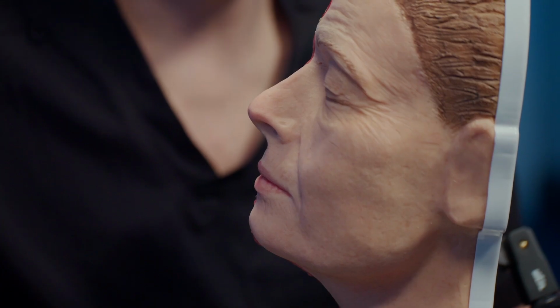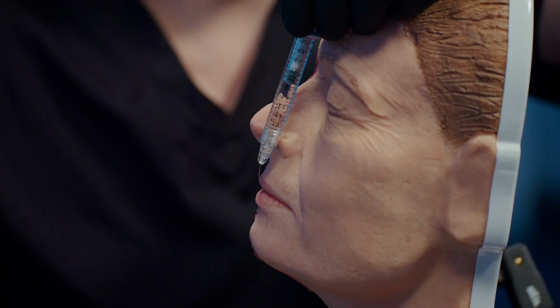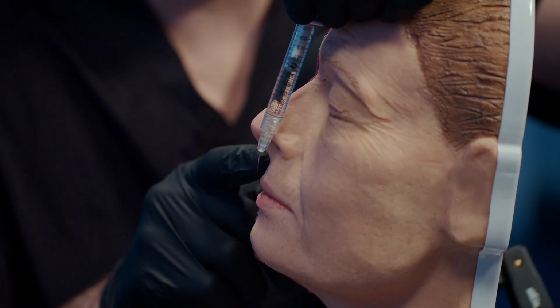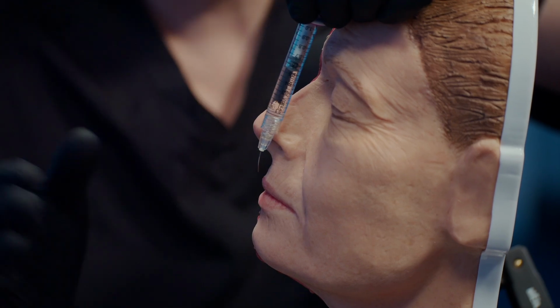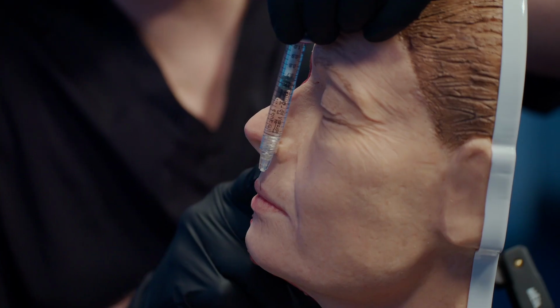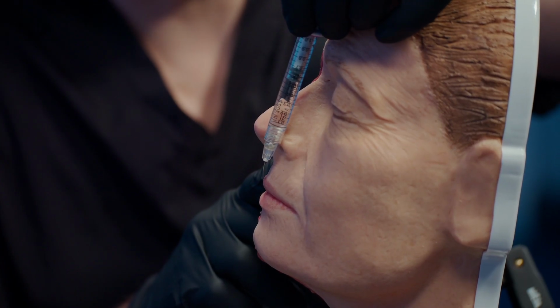So first of all, why would we want to bend the needle tip? It's obvious when you look at the lip in profile that the curvature of the average lip, not all lips, but in most people, there is a curve. And if you want to maintain the same depth all the way around, if you have a slight bend in your needle, it makes this accuracy of following the curve a little bit easier.